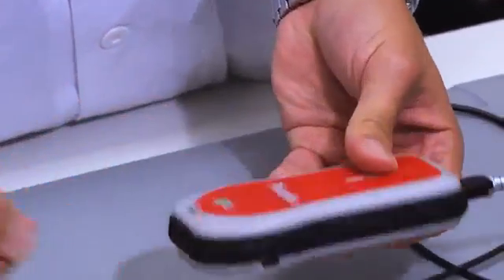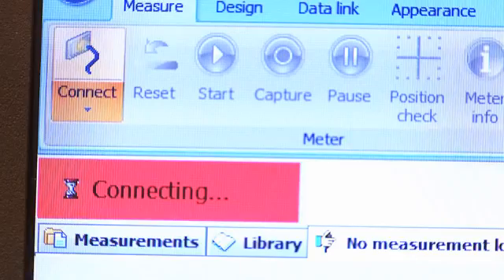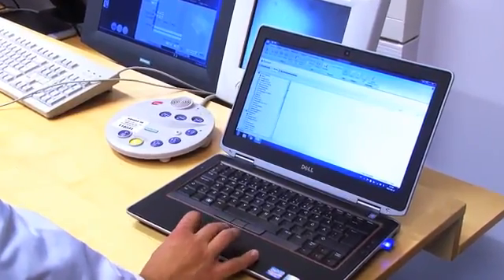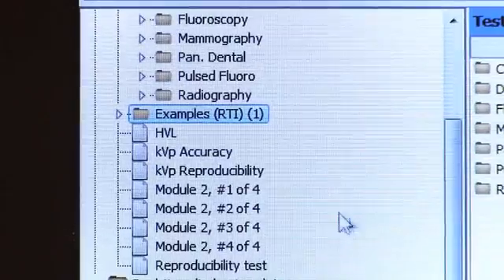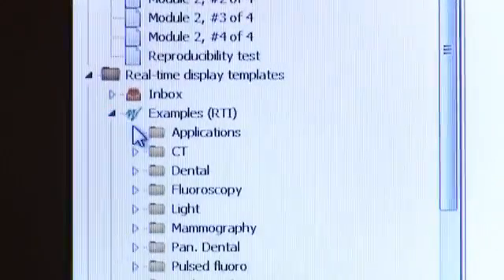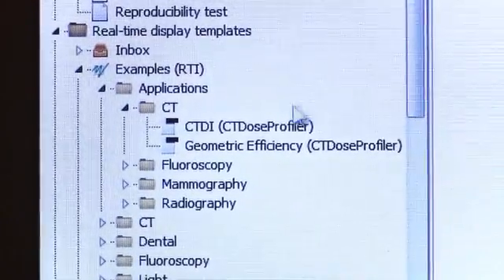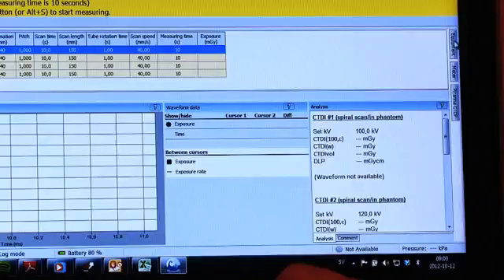Connect the Piranha to the Ocean software. The following steps only need to be carried out once. These settings can be used once again when you, for instance, carry out next year's measurement. In this instruction film, we will be using an existing template in Ocean.